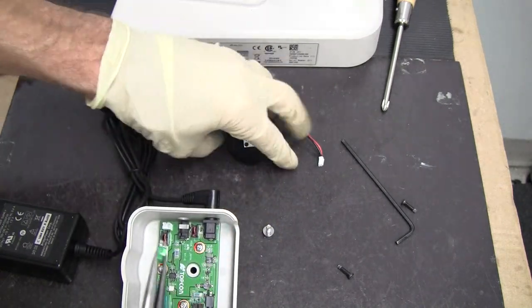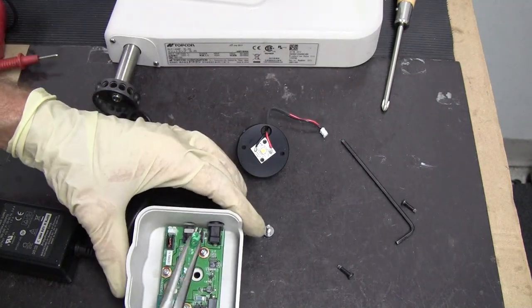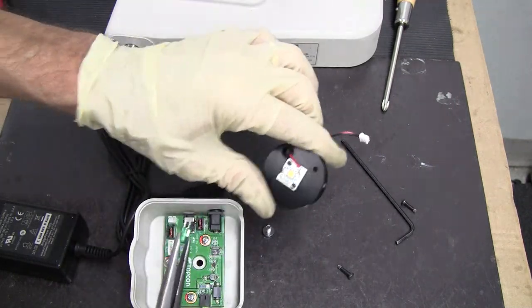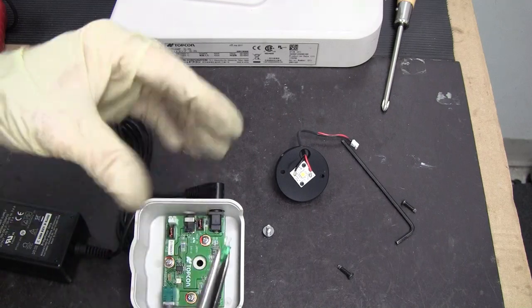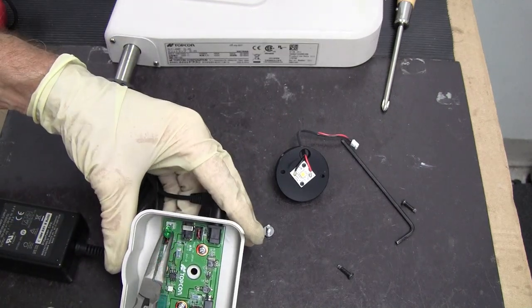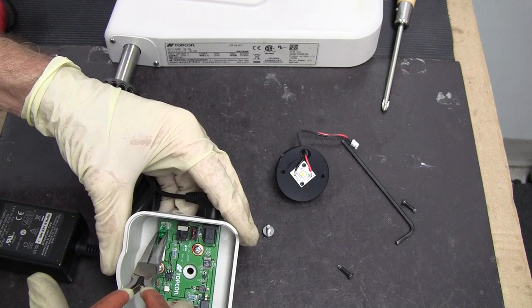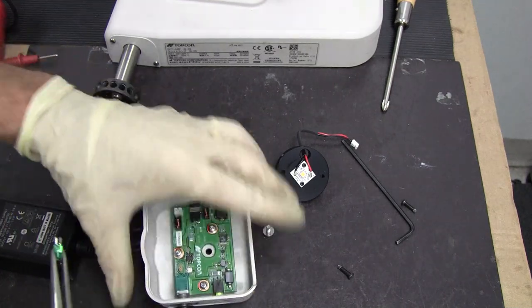If your LED was not coming on to verify that it's this, if you had an extra LED, you could just put it on and test it to see if it would come on when you have the rheostat on.